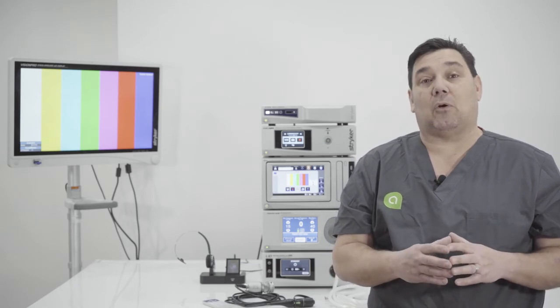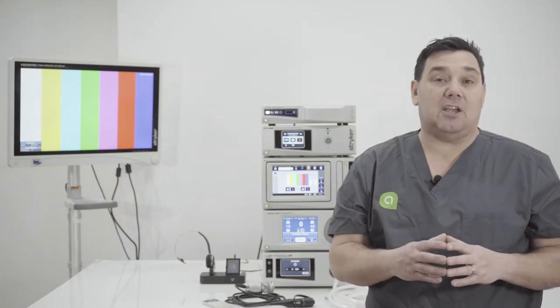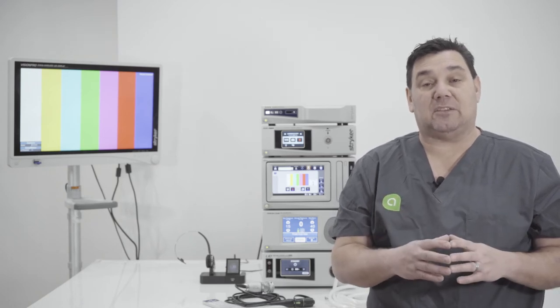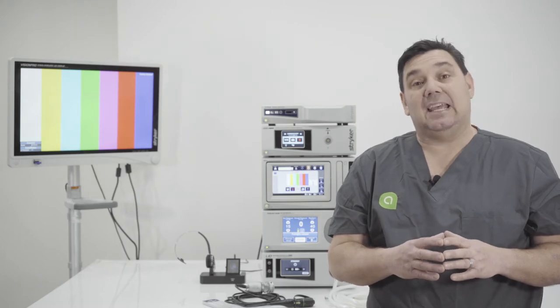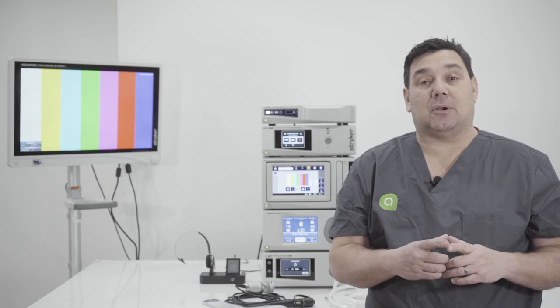Where this comes into play is for a hip arthroscopy. When they first start the procedure they're going to use the C-arm to see the joint space and get into it visually. You have the ability to hook the C-arm, which is a video source input, into the SDC and overlay your picture-in-picture capabilities on top of that.